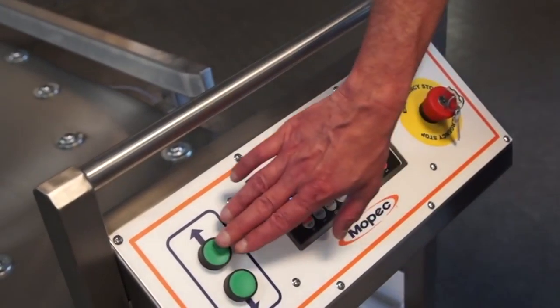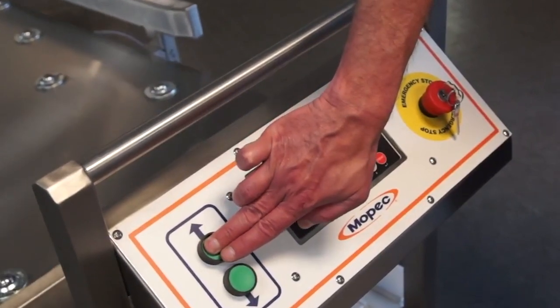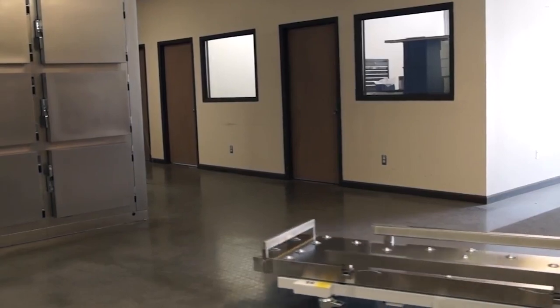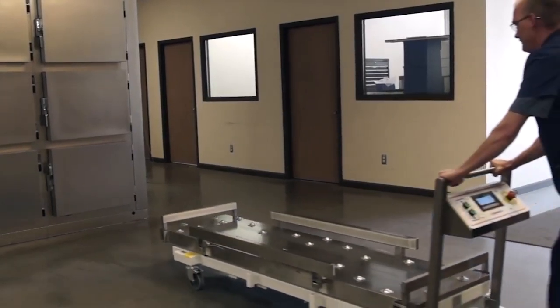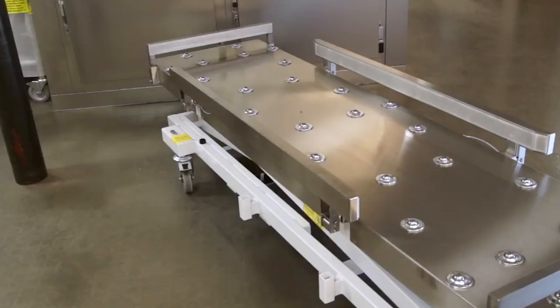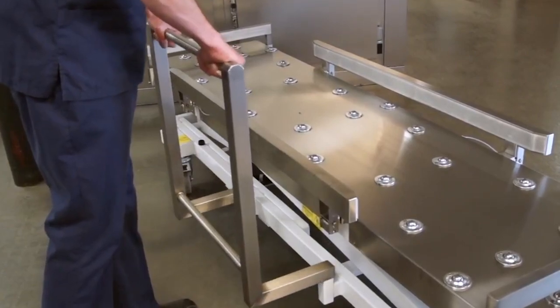All functions are operated by the built-in control panel. This system eliminates cord tangling for effortless handling. Each lift, sitting on four heavy-duty swivel casters, is easily operable by one person. For added steadier maneuverability, each cadaver lift is equipped with a removable side handle.